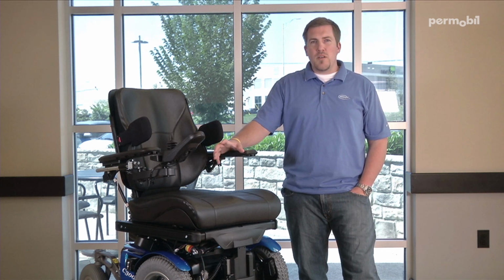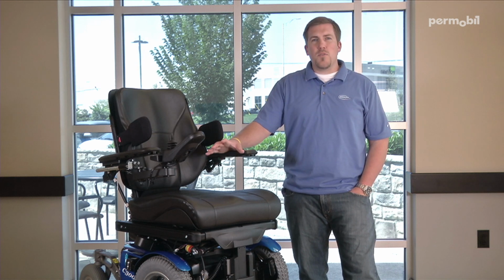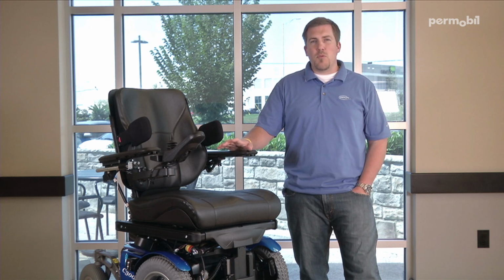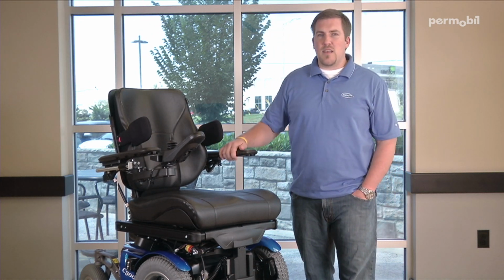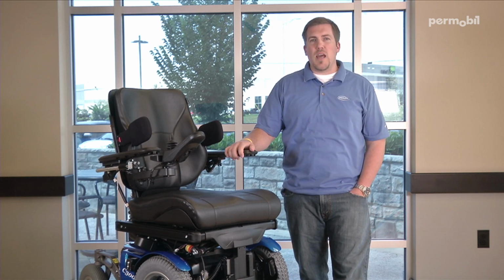To store memory into the wheelchair, there's a few steps that we're going to follow throughout this video. The first step is to position the chair in which it is that you want it to be saved into that memory position. Use your ICS switchbox to position the chair into that spot. At this point, we haven't entered any type of memory mode in that switchbox. We're only using the switchbox to position the chair. Once you get the chair into that desired position, you then go through the steps of programming and saving that memory.